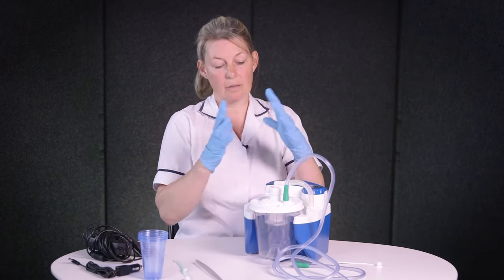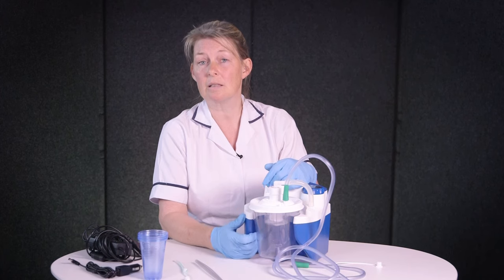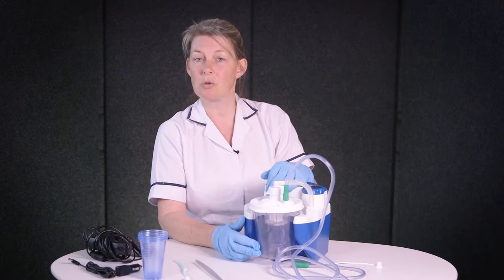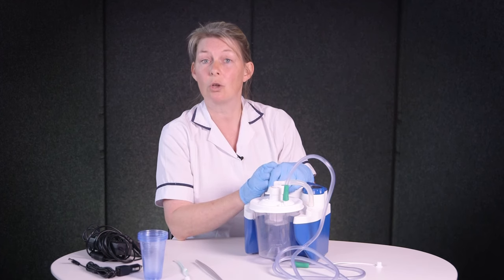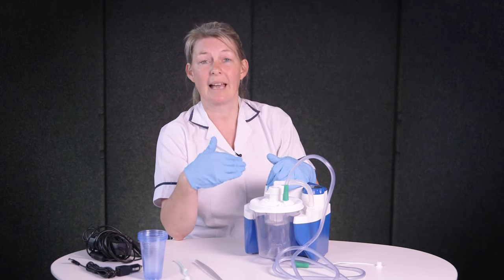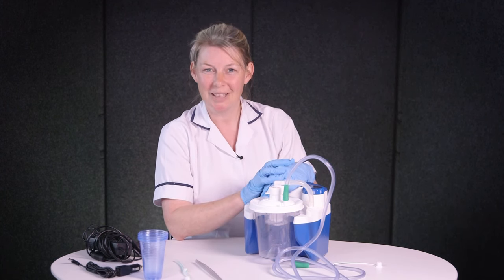For all cleaning and instructions, please refer to your specific manufacturer's details. Suction pressure should always be the least you need to prevent trauma, and always be guided by your clinician. If there is ever any evidence of bleeding or sore gums, use the suction with caution. If your secretions change in terms of thickness, colour, or volume, please talk to your GP. It's normally very safe, but if you experience any gagging, vomiting, distress, increased breathing rate, or difficulty breathing, stop the procedure and seek medical advice. I hope you found it helpful — thank you.